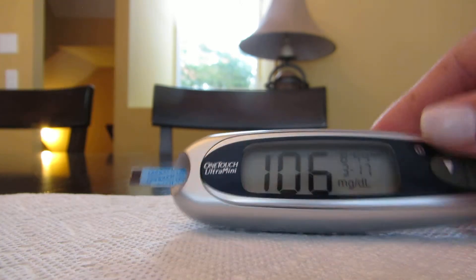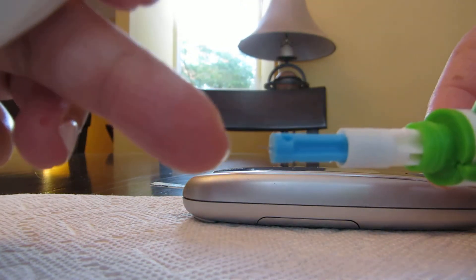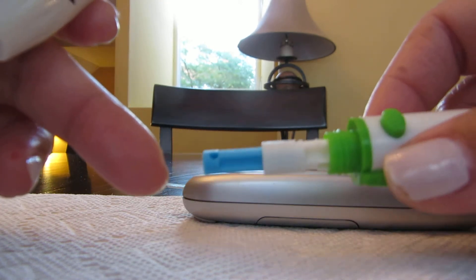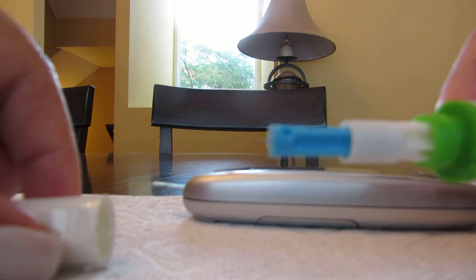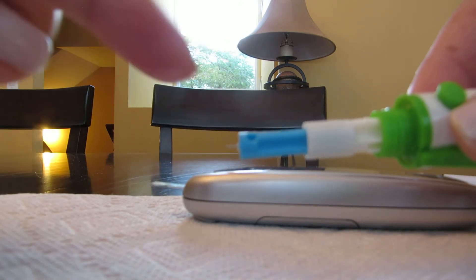I don't change the needle every day because I make sure I check my blood glucose level regularly and my hands are washed thoroughly, so I try to save money on the needles.